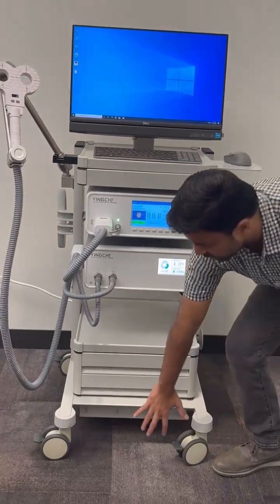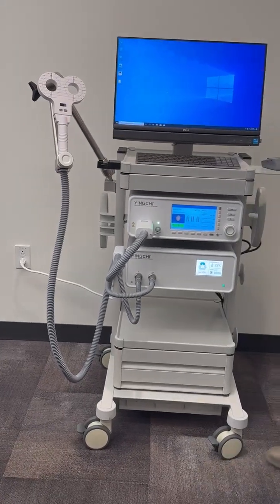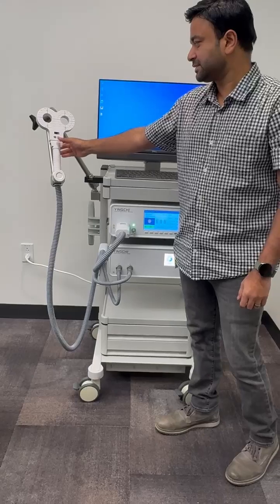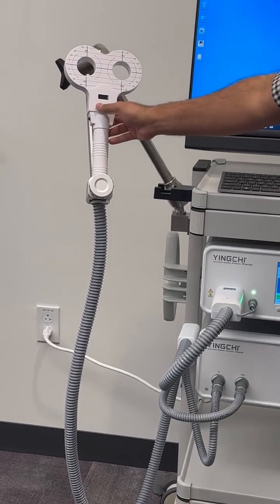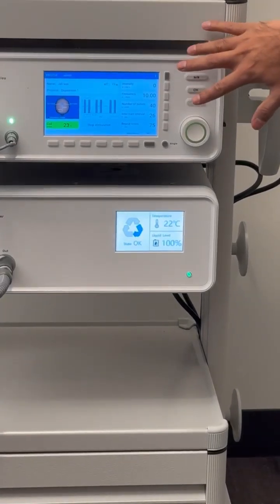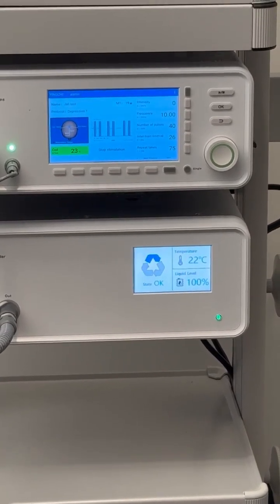There is a built-in transformer that sits underneath the cart, and on the left side, you have the TMS coil connected to the coil support. We have the all-in-one computer with a keyboard and mouse to be able to operate the software. The coil itself has trigger buttons, and you can select the intensity of your stimulation right from the coil. The other option you also have is on the TMS device itself. So the entire protocol, patient selection, and intensity can be controlled from the device front along with the software. Now let's get into the software and see how easy it is to operate.